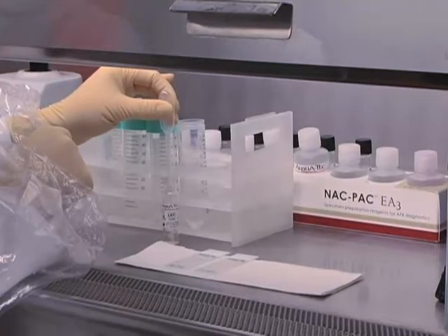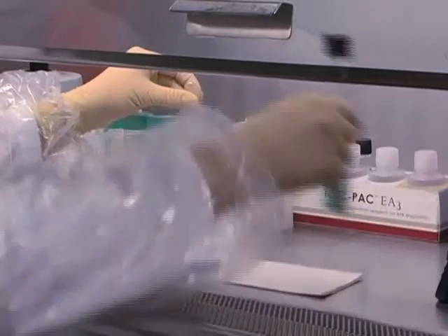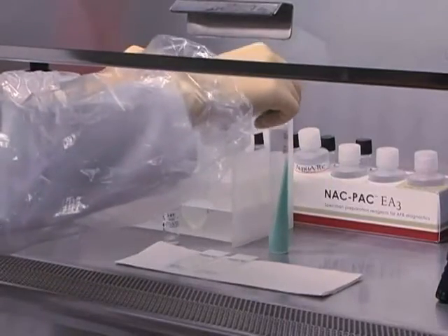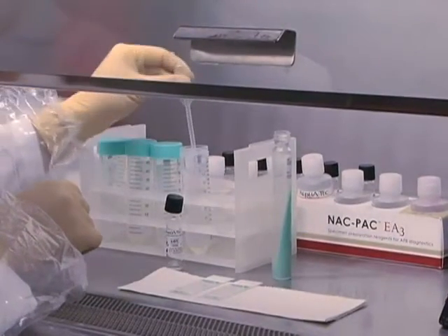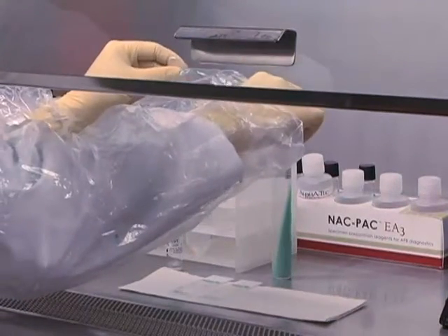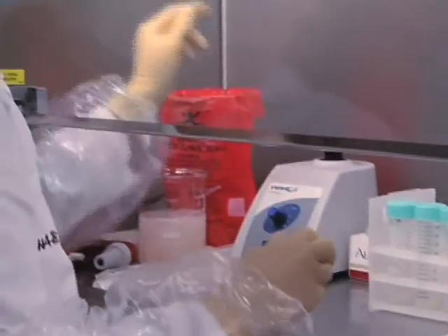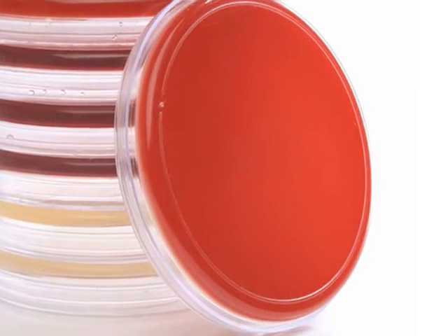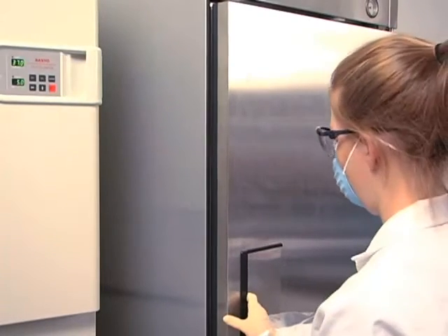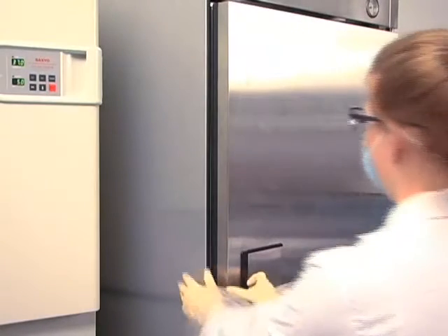Using the same pipette, add an additional 1-2 mL of the pellet resuspension buffer from the same vial and inoculate all other TB media and rapid detection equipment. This additional pellet resuspension buffer will ensure your specimen is within the ideal pH range for automated detection systems, traditional culture, and molecular diagnostics. Make sure you only add enough resuspension buffer to accommodate the diagnostic procedures you will be performing, as this will ensure the highest organism concentration. At this point, you should also inoculate a sterility plate so you can rapidly monitor any contamination that might be present. After inoculating all other AFB media, add any remaining pellet resuspension to the specimen pellet and save it at refrigeration temperatures so it is available for any follow-up procedures.